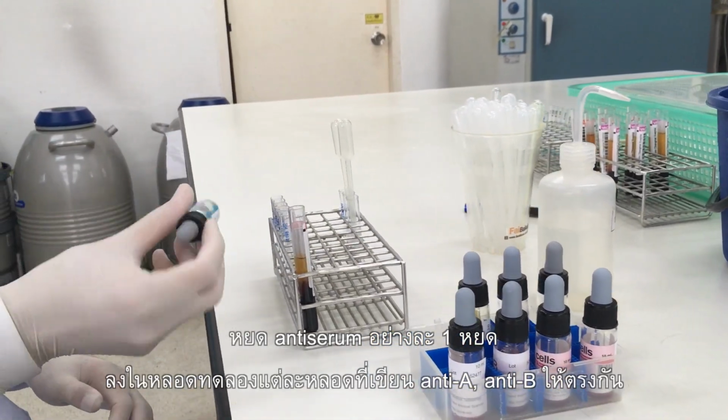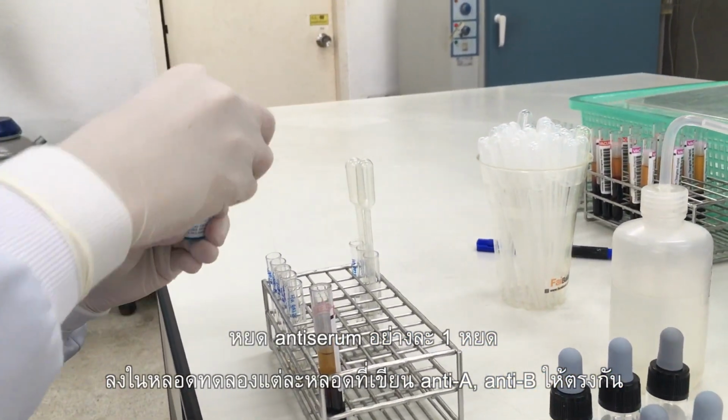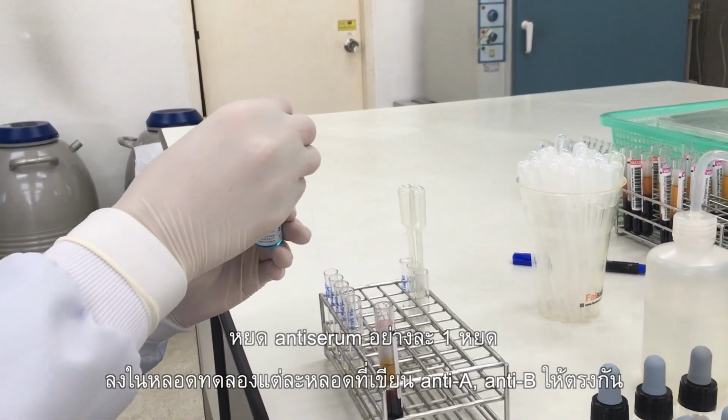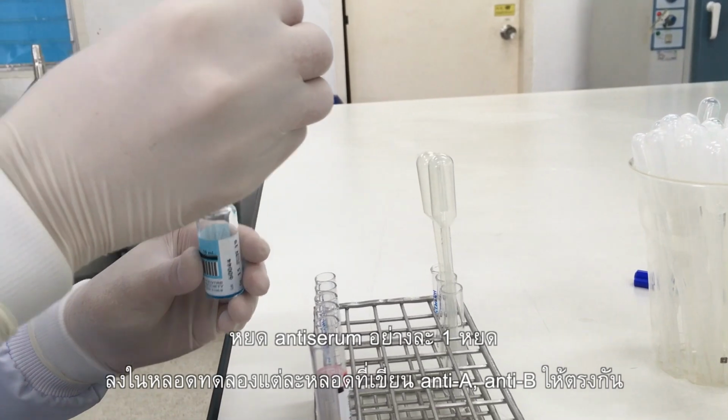In a set of cell grouping, transfer 1 drop of anti-A and anti-B to tube corresponding to label.